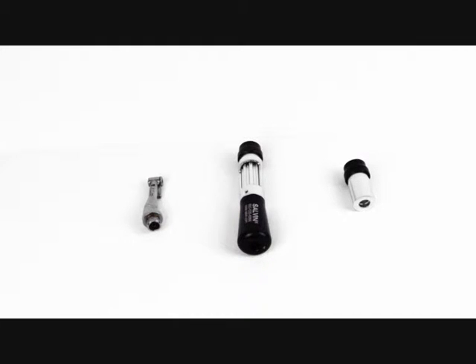Hi, my name is Dr. Craig Mallory. This is a product review of the right-angled prosthetic wrench from Salvin.com.